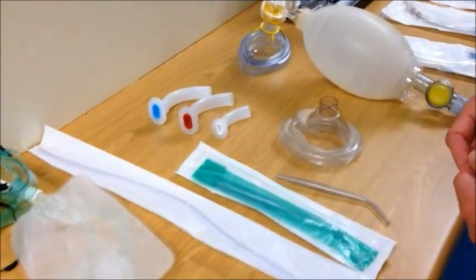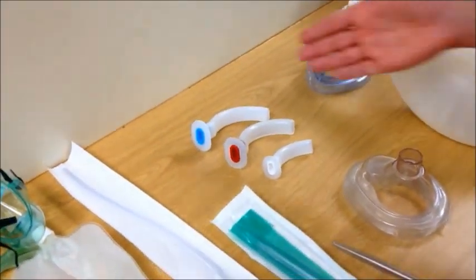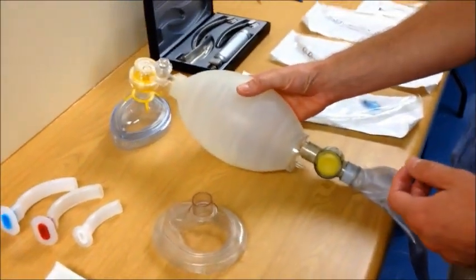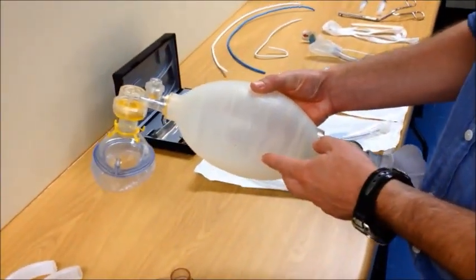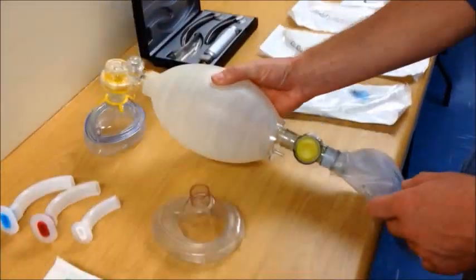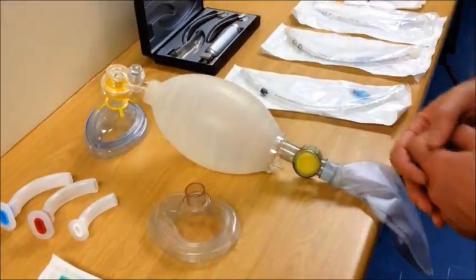You should have a selection of airway assist devices such as oropharyngeal airways and you should have a ventilation device, in this case a self-inflating bag valve mask ventilation device with a selection of mask sizes. Your equipment should be checked and ready to use.